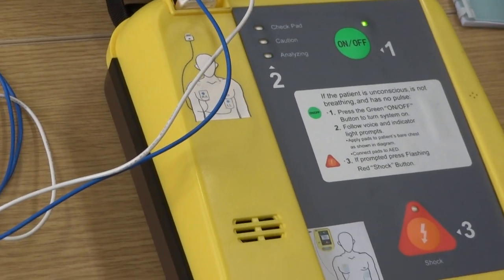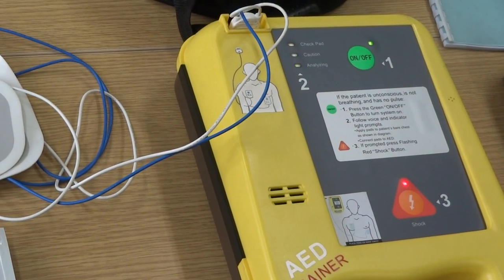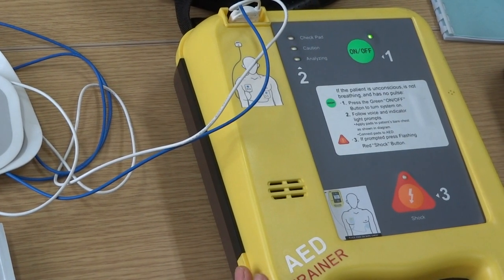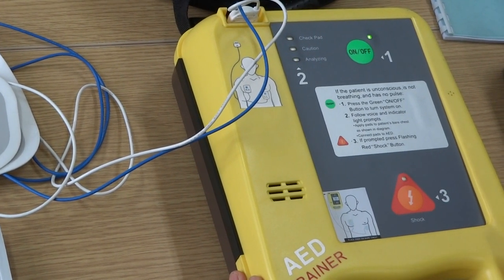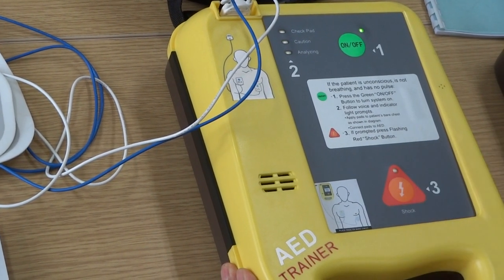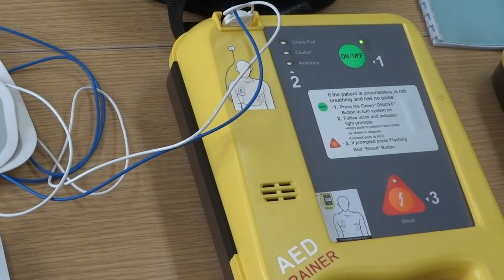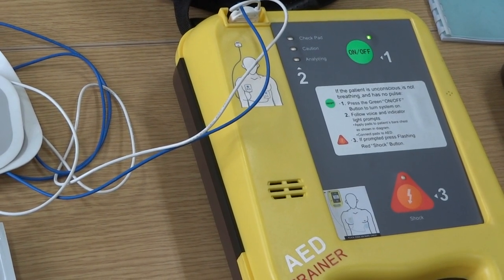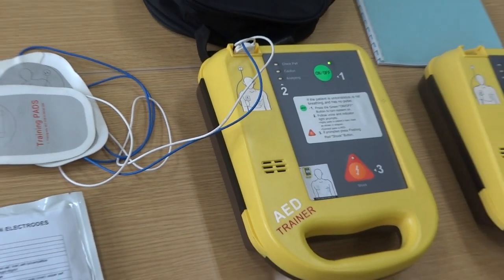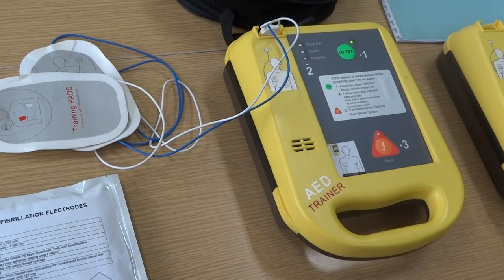Charging and analyzing whether the patient needs CPR. Press the flashing shock button — this means the patient needs a shock. 'Shock delivered. Shock delivered. Patient may be touched. Carry on CPR: 30 chest compressions and two mouth-to-mouth breaths, then repeat the cycle.' This indicates the patient needs CPR.